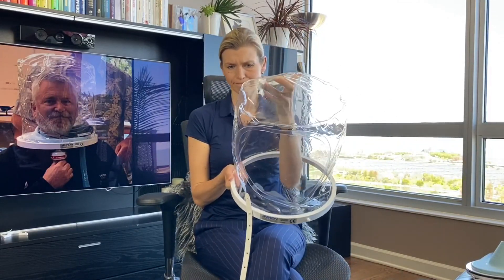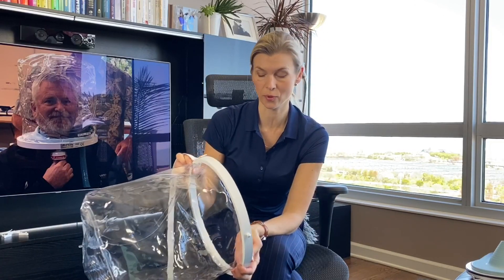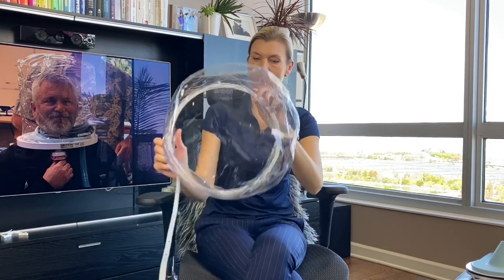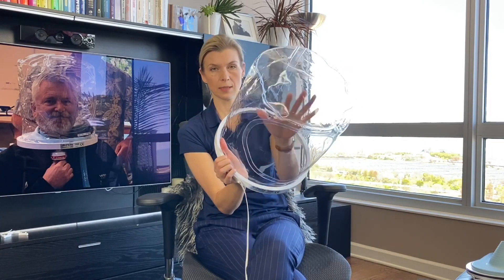Now the top part of the helmet is very light and again very nice solid plastic. There are some ribs inside — this is why the helmet doesn't separate at high pressure. We have an optical window, which is good not just for a clear view for the patient, but also it keeps some shape of the helmet and keeps the plastic away from your face.